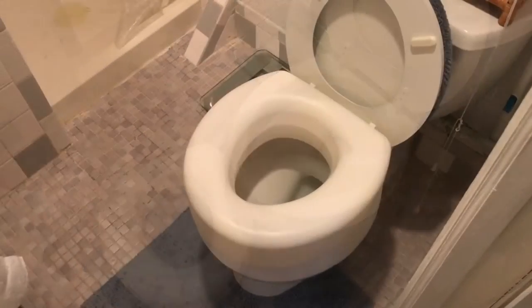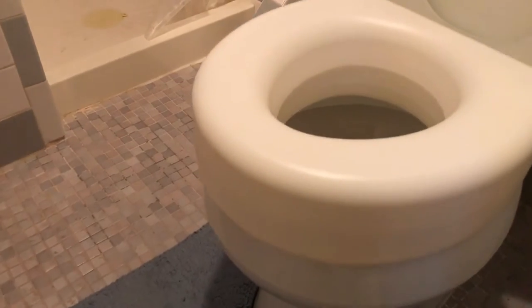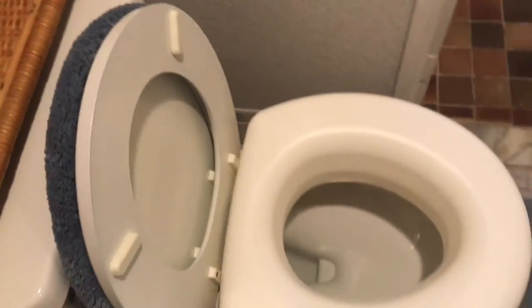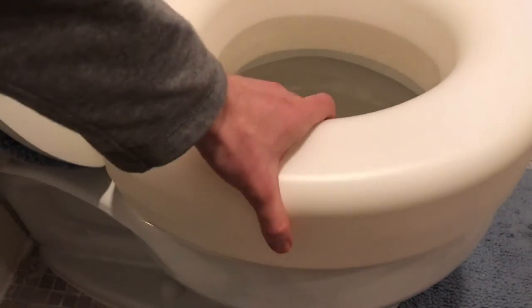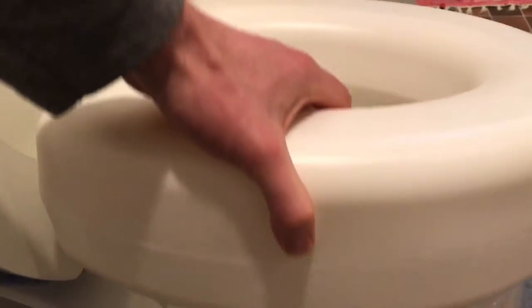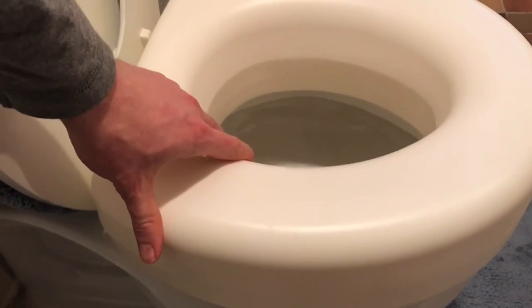As you can see, it fits in pretty nicely. It has these kind of black rubber mats so that it rests with a non-skidding surface.